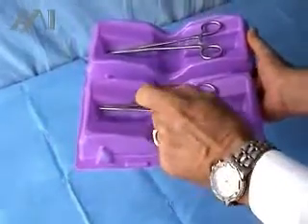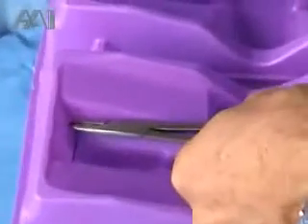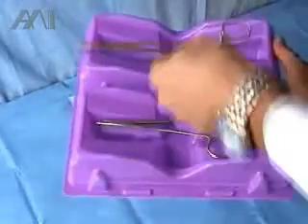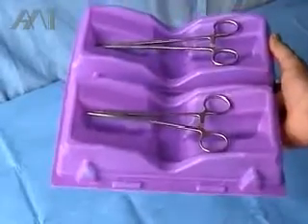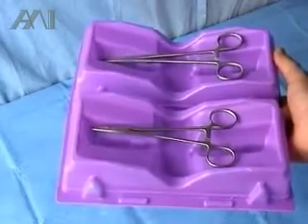You can see the loaded needle is on one tray, and the surgeon can easily pick it up from the pick-up zone in a very safe mode.